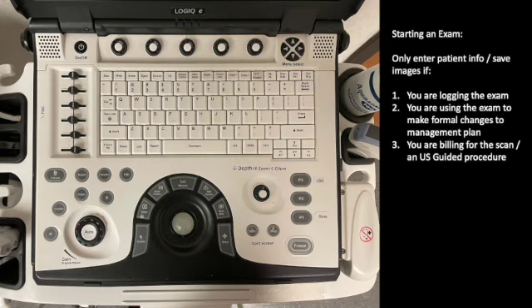But if you're just pulling out the ultrasound to see if you can get the same dating, you just need to take a look at something to see if it's a cyst or if it's just an area of induration. If you are just looking for fetal heart tones and not necessarily using that to change your management, it's okay for you to just pull up a blank patient profile, gather a couple of images, and then delete those images before the end of the day. That's totally fine.